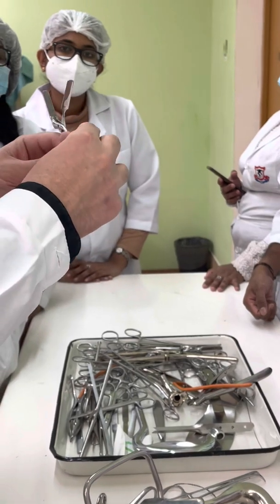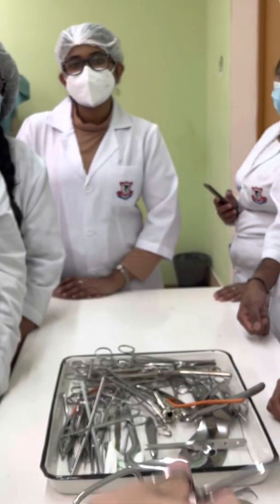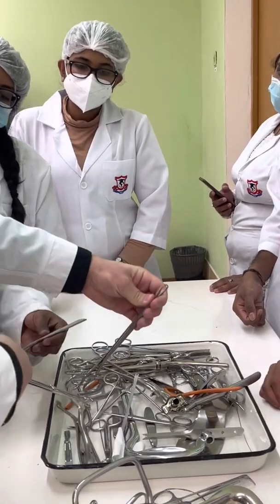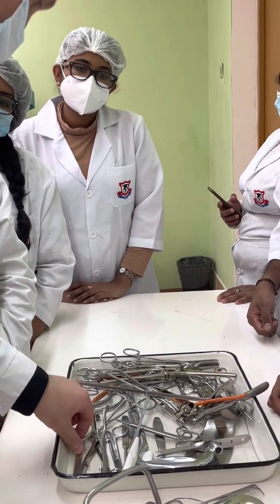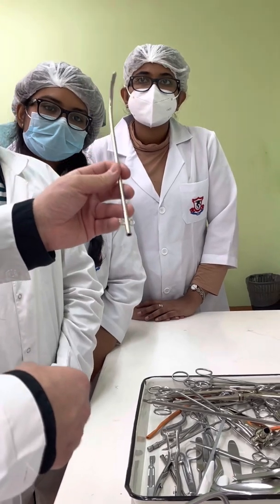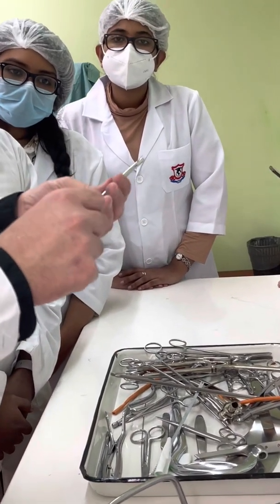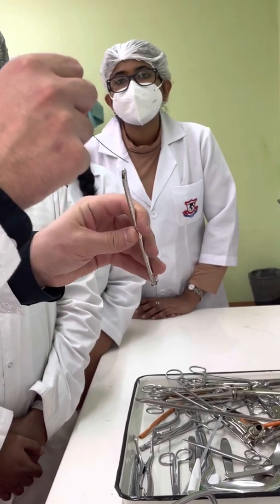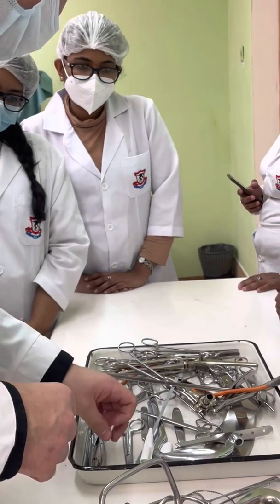Now we have two vascular forceps. Here, vascular forceps or vascular clamp. Double or single bullet-tip forceps. Here, metallic catheter for female. Inside of it there is a wire called a mandrin. It is necessary after the manipulation to clean the internal surface from patient tissues. This is not a part of the instrument — it's just for post-operative care.